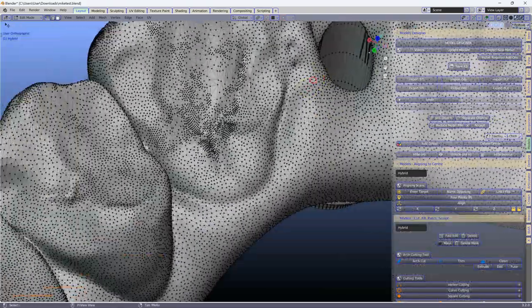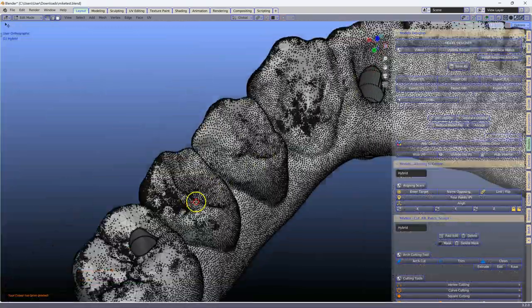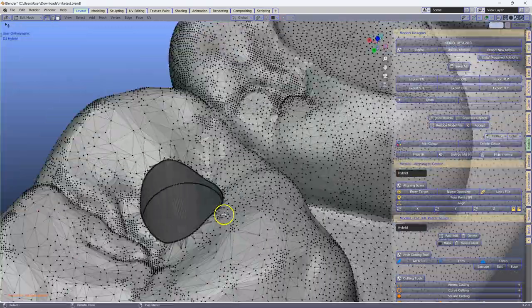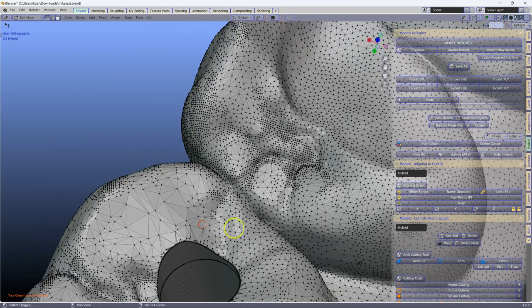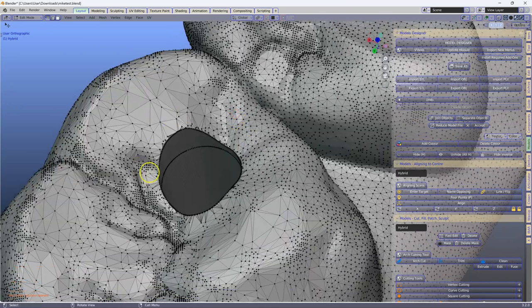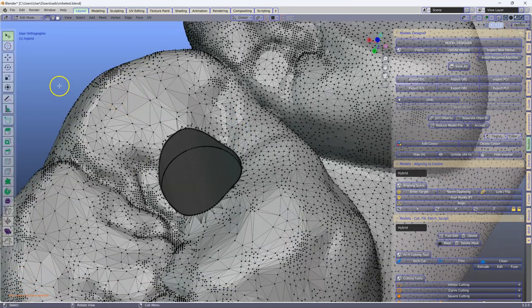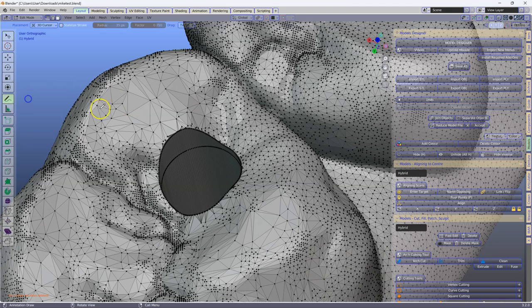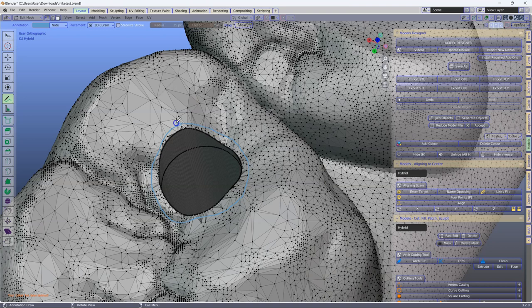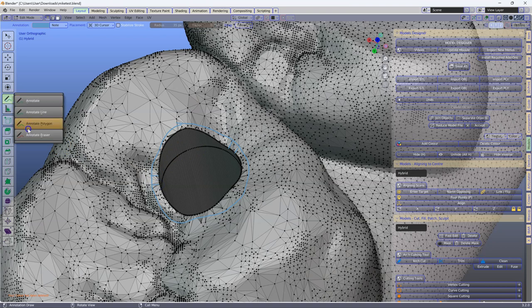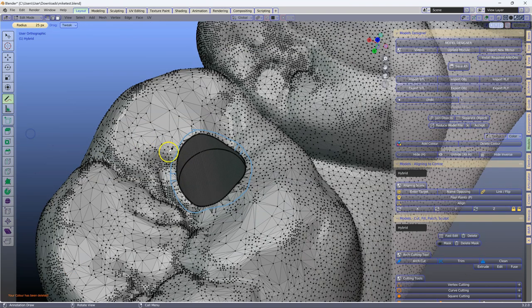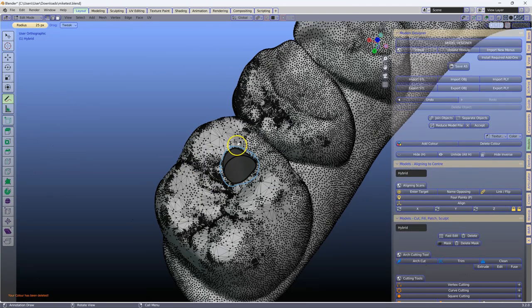Ideally, we should have a supporting structure that goes around these screw holes, which should look like something like that. So we've got a support structure going around like that, and we've got the vertices and edges like that. In this event, it's not been done. So please consult your Exocad and make sure that you have these holes correct.